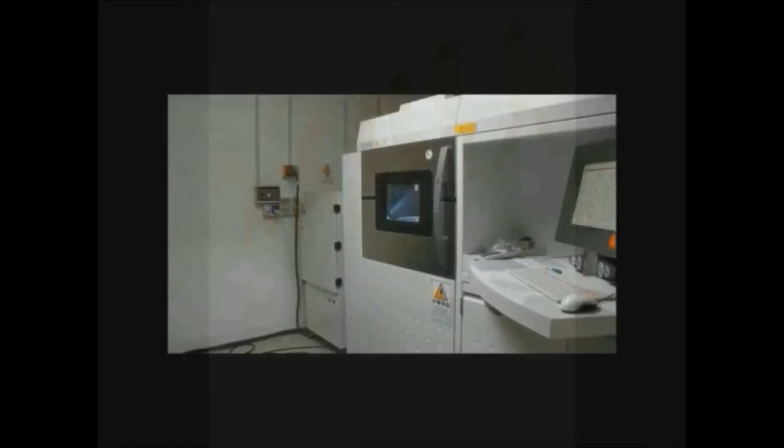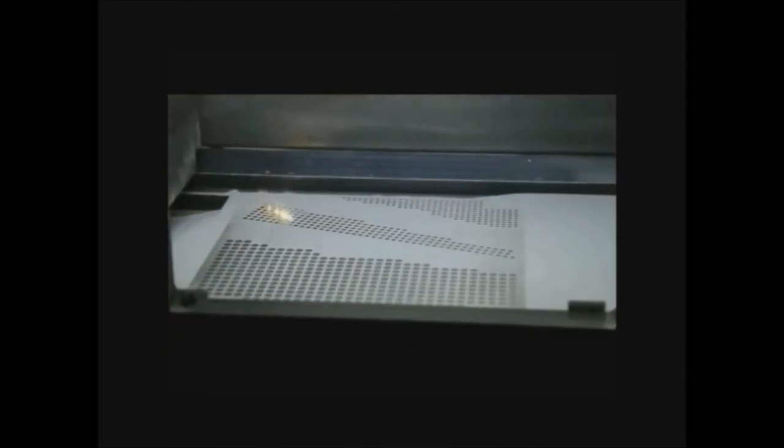This was one of the first videos taken with the machine adapted for the fabrication of titanium dental implants. It worked layer by layer — the machine was capable of fabricating dental implants with a porous surface and a dense core using the power of the laser. This is essentially how 3D printing works. But at that time in 2006, it was something revolutionary and totally innovative.